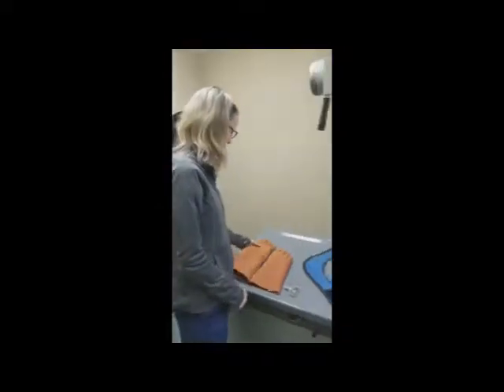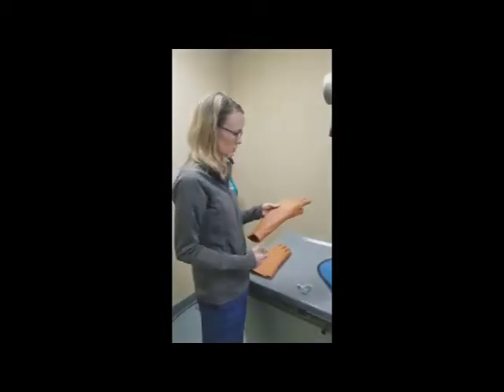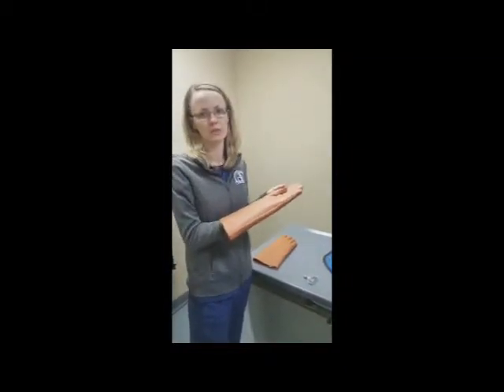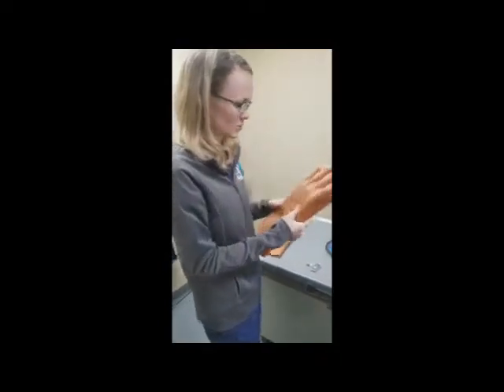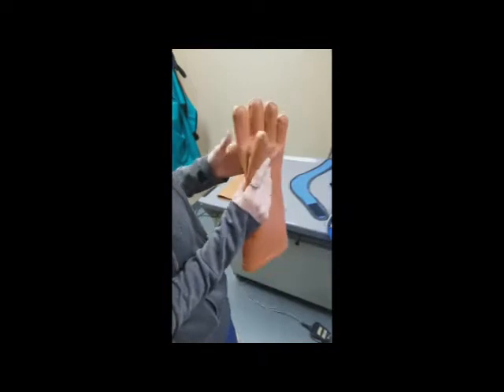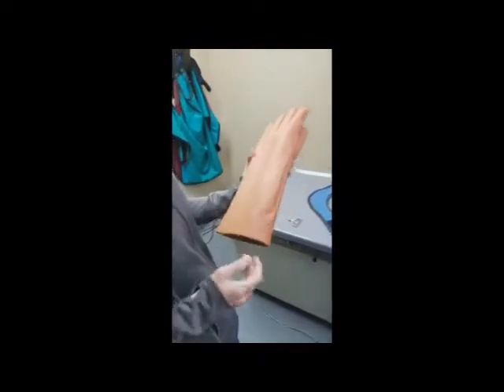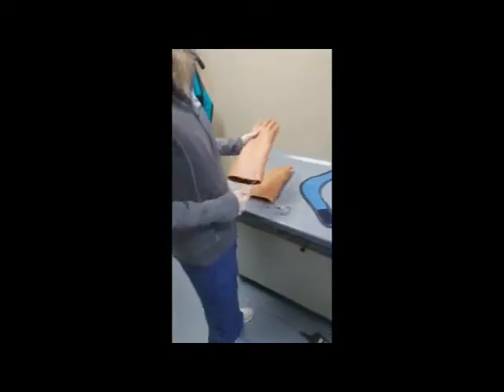Now let's go over personal protective equipment. These are lead-lined gloves. You want to look them over for any kind of bites or cracks, because at that point they're not going to protect you — x-ray beams can go through them. There are no bite marks, cracks, or cuts visible on these, so these gloves look good to use.